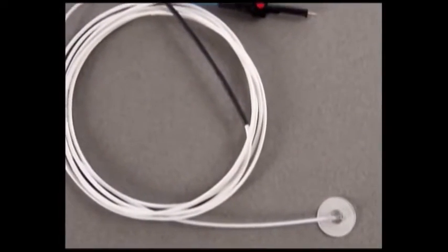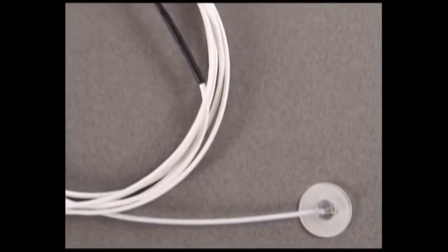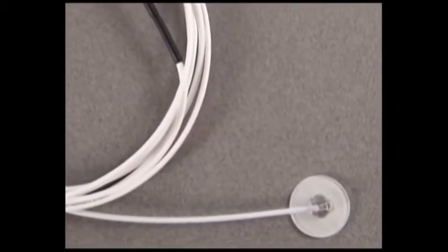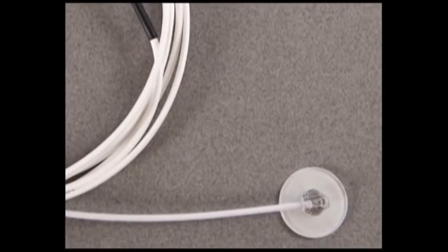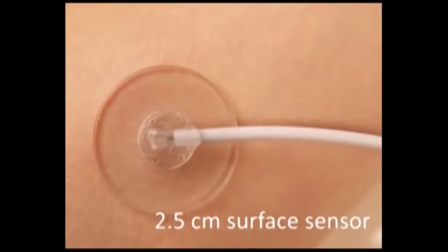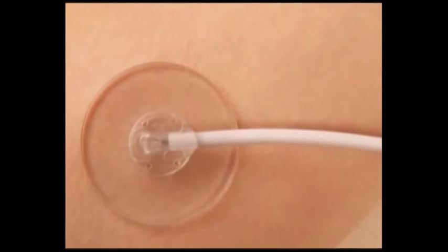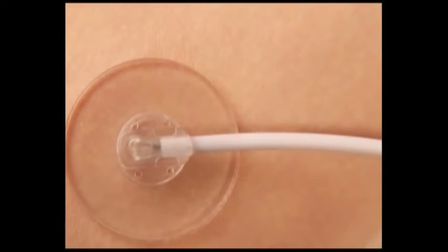The surface sensor is used on skin or other tissues for monitoring local perfusion. One use is during and after surgery to monitor surgical free tissue transfers during post-operative recovery. The surface sensor comes in 2 sizes, a 1 centimeter wide sensor and a larger 2.5 centimeter sensor. The 2.5 centimeter sensor is identical to the smaller sensor, save for a clear disc added to assist with stable placement on the skin.